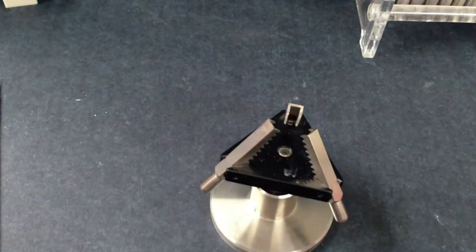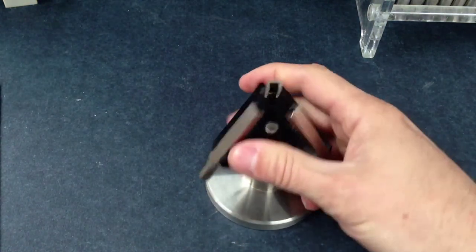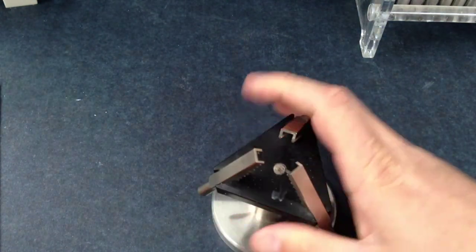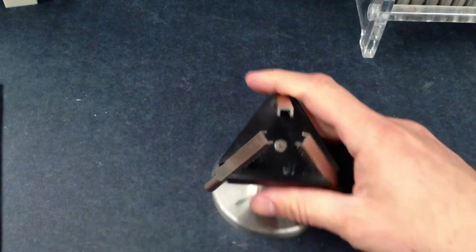A model holder, which you will not have but I will use. It is helpful to free up my hands so that you are able to follow the video better.